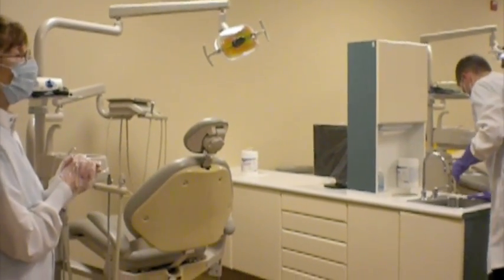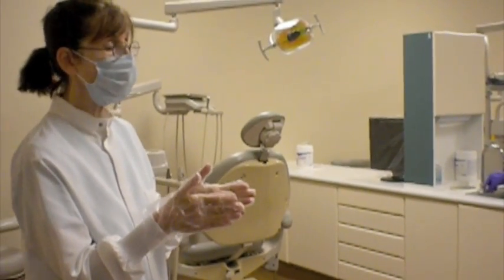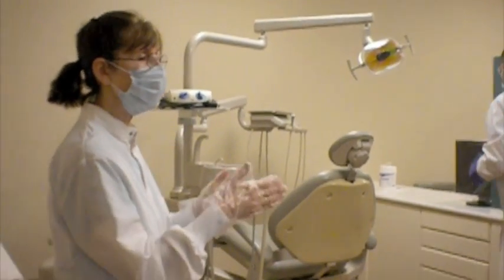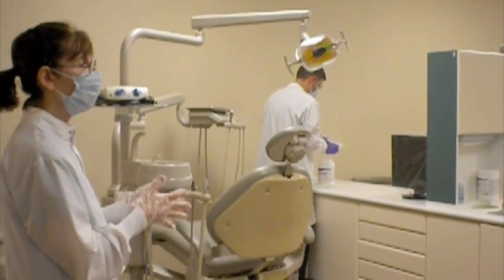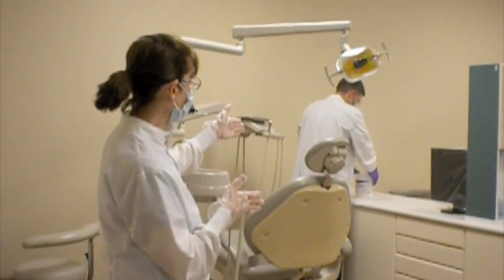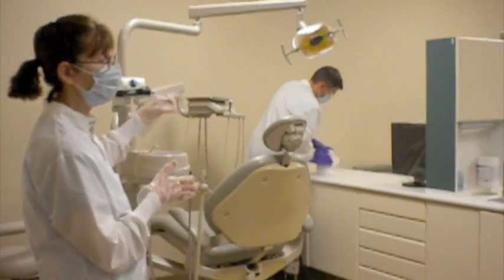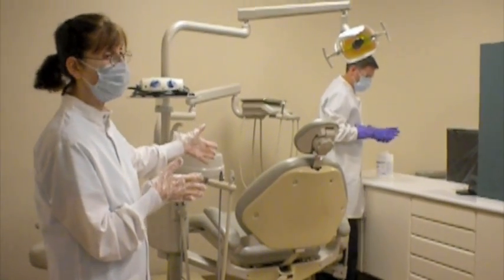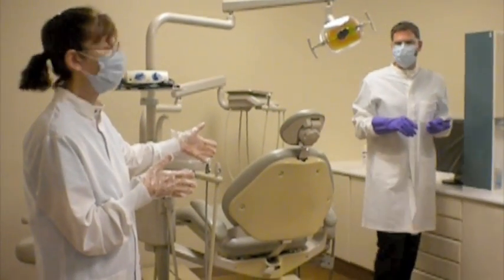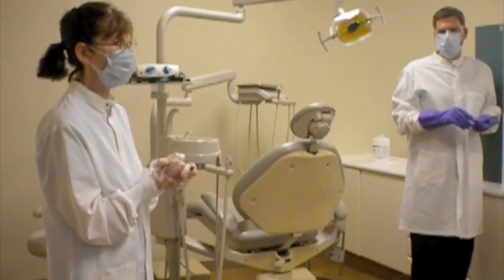So that's the point where we're going to stop today for the unit preparation sequence, and then we would pick this up again on Wednesday. We'll go from the disinfection wipe. So here's the disinfection wipe of the canister. So he would wipe again the top, the sides, the bottom, place it back on that paper towel. Okay? And then we'll proceed from there with our unit preparation next Wednesday.